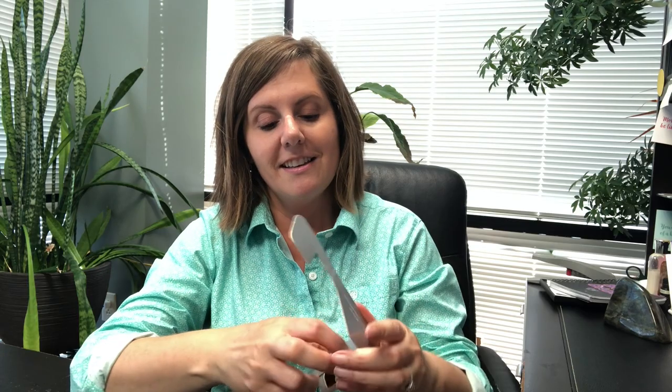So you would again wear these glasses for a specified amount of time. You put the glasses on and you would look at a light source for a specified amount of time every day, five days a week. And in phase one of our vision therapy program, you would do that for about three to four months, and you would use some other filters too. But we would start electrically training your brain to signal the muscles of the eyes on how to line up properly.